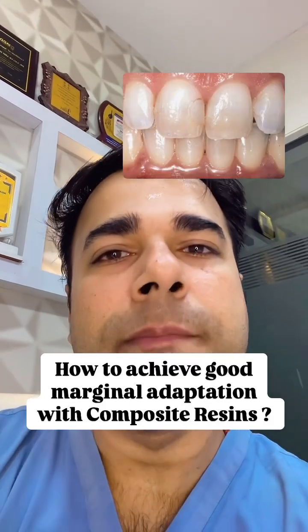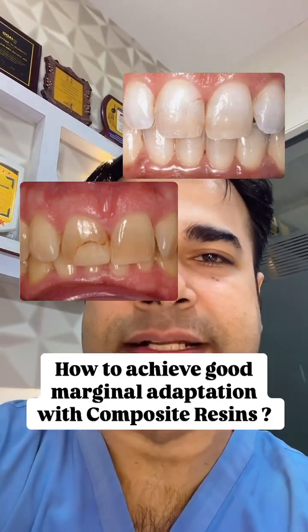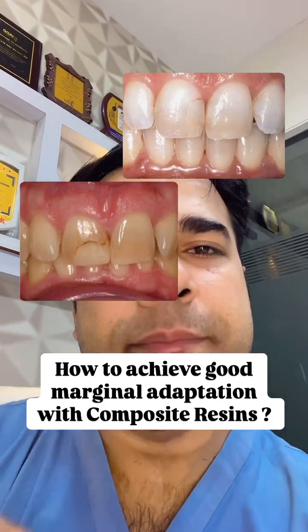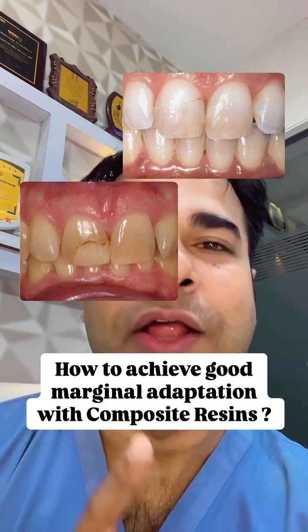How to achieve good marginal adaptation with composite resins? Let me share some quick tips with you.